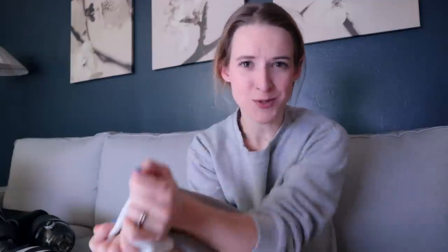The shrinker I'm supposed to wear whenever I'm sleeping, but the liner I'm now supposed to wear all the time. This liner is like sticky silicone on the inside. It's really cold to put on for the first time in the day, so this is going to be a little bit chilly. It's also a lot more thick and padded on the bottom, so it helps protect the end of your residual limb. It's a lot tighter — it helps shape your leg and helps your leg actually stick to you. So let's give this a shot.